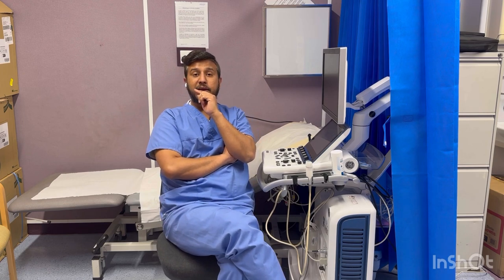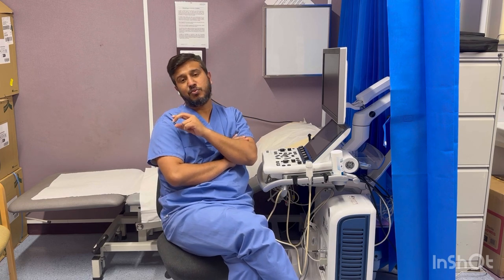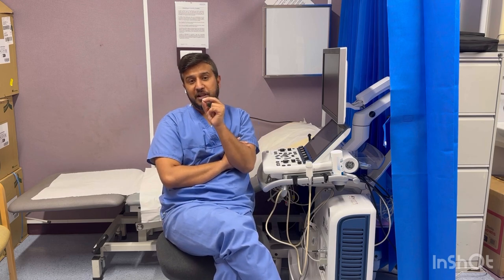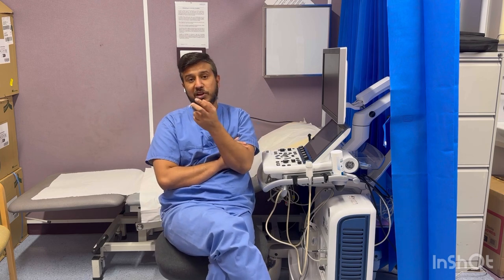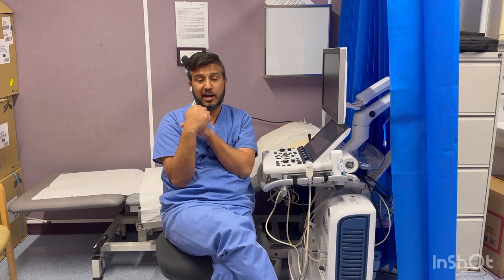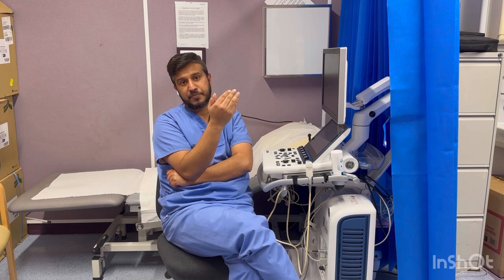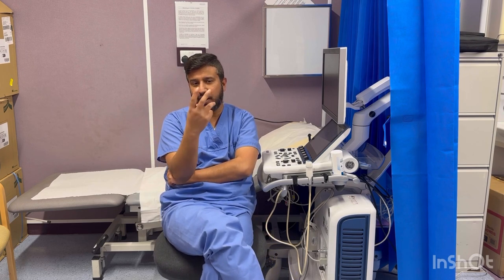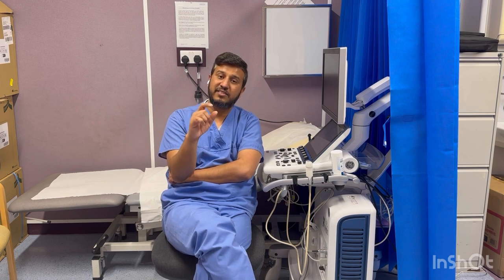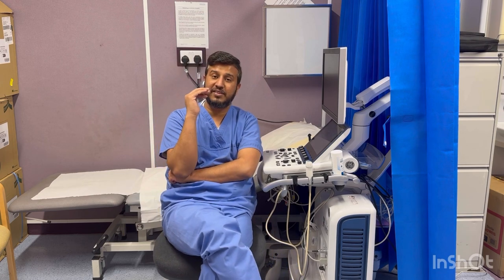Continuous wave Doppler is continuously sending and continuously receiving sound waves — that's why we can detect high velocities using it. Pulse wave Doppler cannot detect the highest velocities because of the Nyquist limit. The Nyquist limit is the maximum velocity we can measure using pulse wave Doppler. When our velocities exceed the Nyquist limit, we call it aliasing. These two terms — aliasing and Nyquist limit — usually come up in exams.